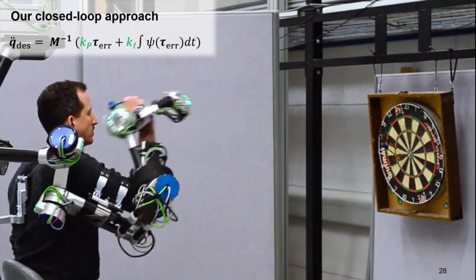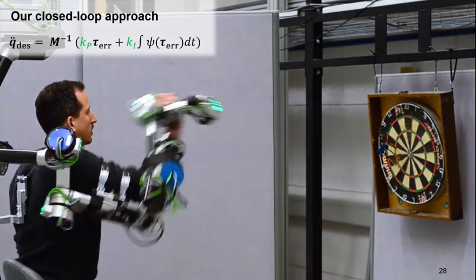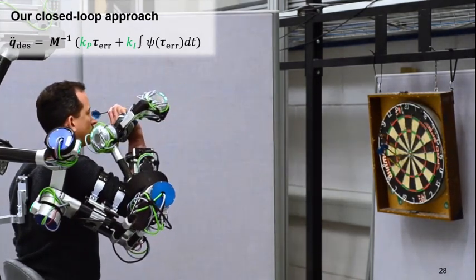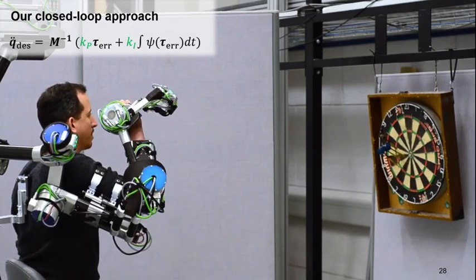However, what is interesting to see here is that the gravity of the robot fully gets compensated by the feedforward model, while the inertia gets to around 50 percent compensated by the closed loop models that we run.